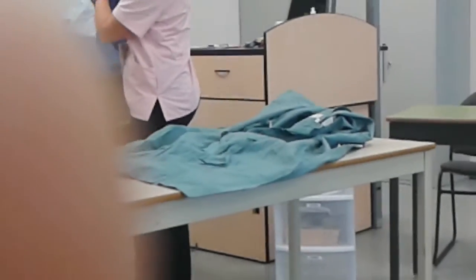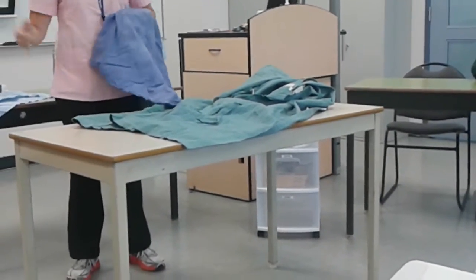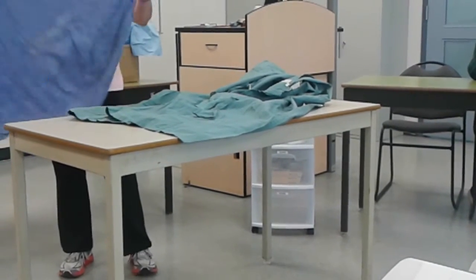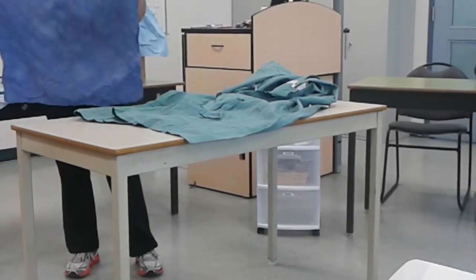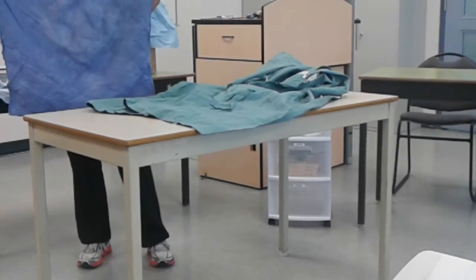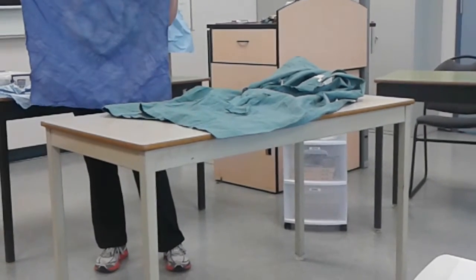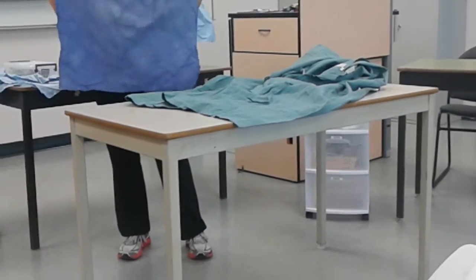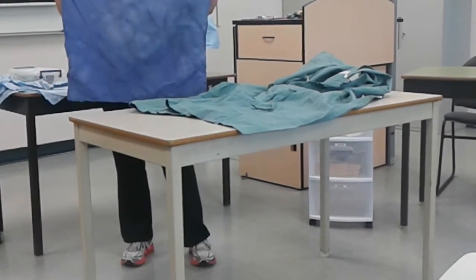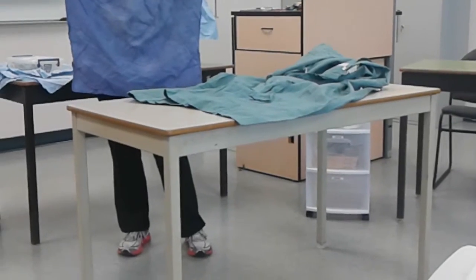This one is, albeit, it's a coffee stain now, but there were a lot of other stains on this in the meantime. Please forgive the fact that these are all crinkly like this. However, most of the time these sheets do actually look like this when we get them out, because they've come out of surgery, gone through the wash, and we're taking them out of the dryer. They've taught lots of students — generally our first step is picking it out of something like a laundry basket that's just been washed.